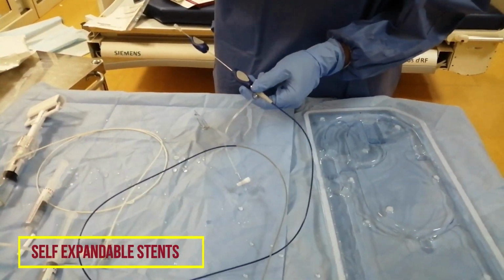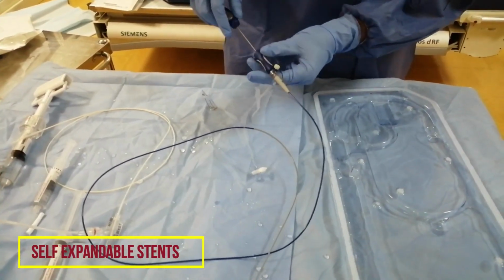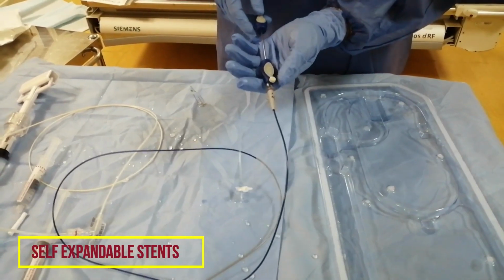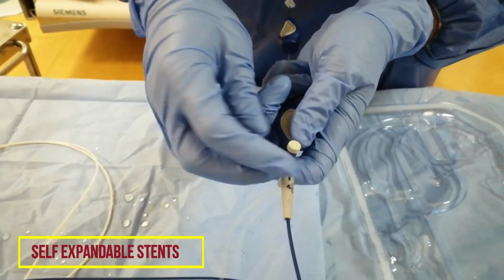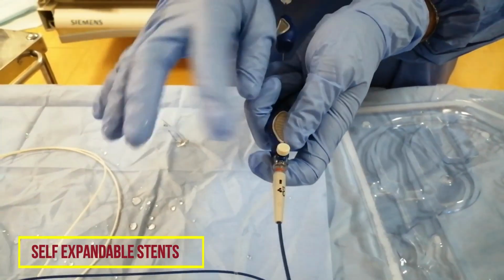Once the physician places the stent according to the stenosis or the lesion where they want to place it, this is the deployment. How will the deployment be? You have a port here, and it is tightened now. You will unlock this one by rotating it anti-clockwise. So now this is loosened.